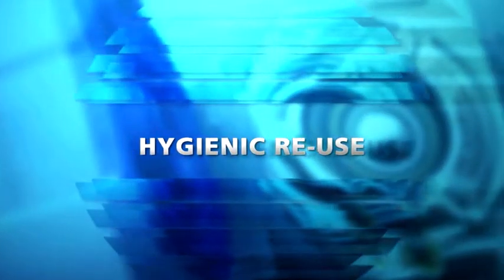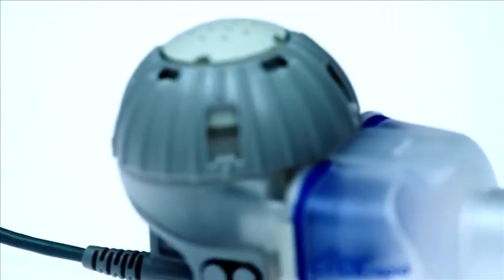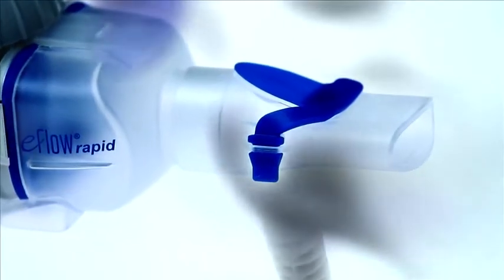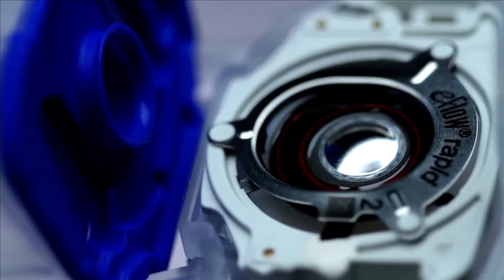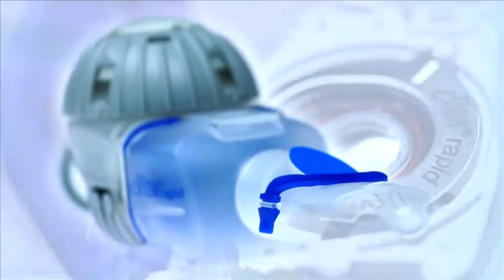The eFlow Rapid Nebulizer handset must be cleaned and disinfected before it is used for the first time. All parts of the nebulizer handset must be cleaned of medication residue immediately after each use, and the system must be disinfected at least once a day.